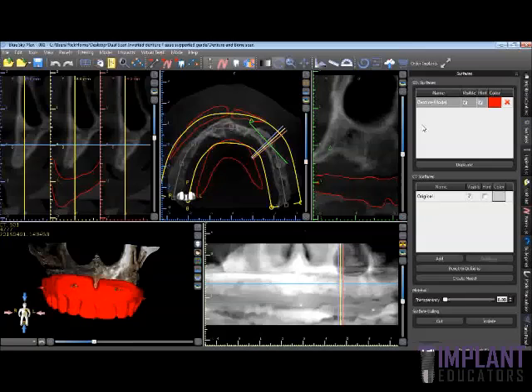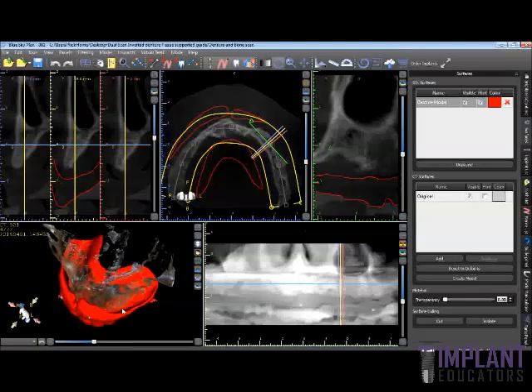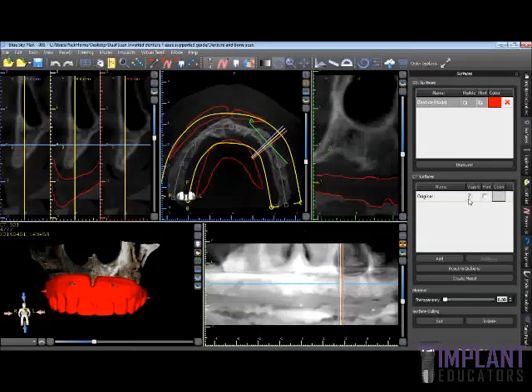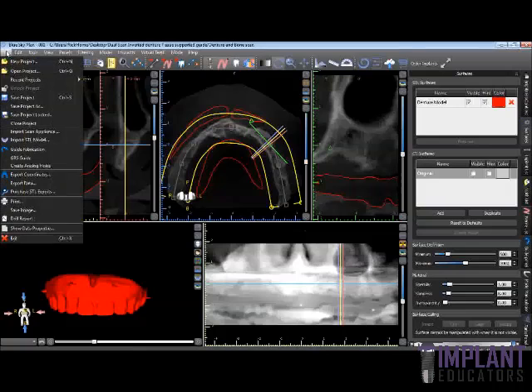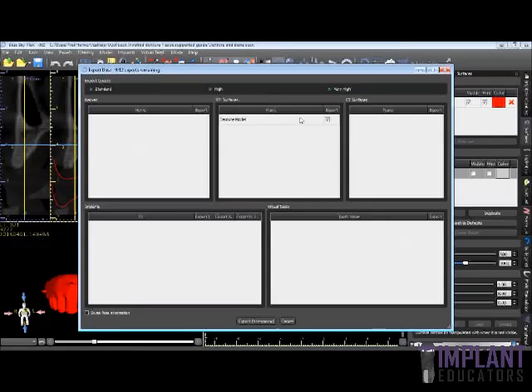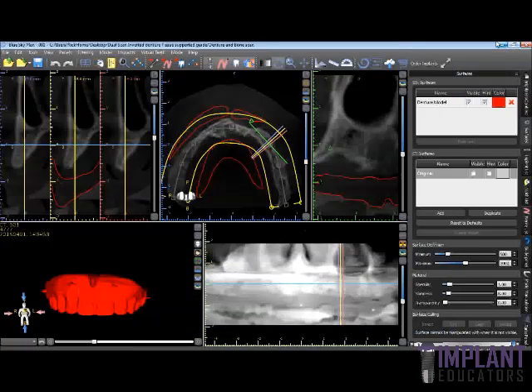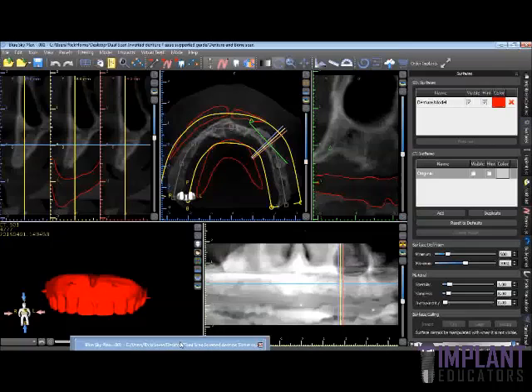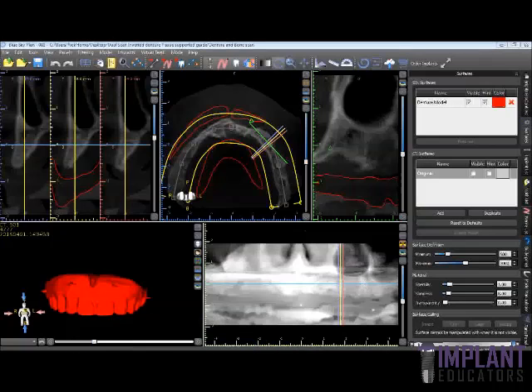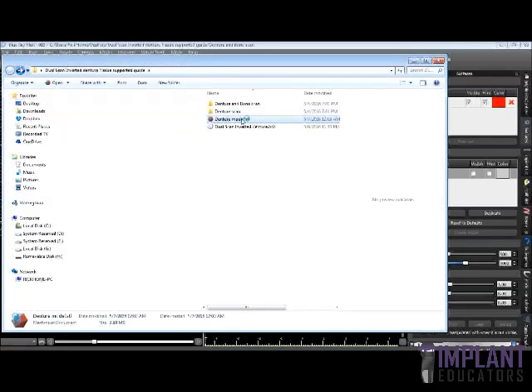In order to get a soft tissue model, we're going to export this denture model out of the software. I'm going to uncheck the original model, which is a CBCT of the bone scan, then go ahead and do Export Data — it's only going to have the denture model there. We're going to export this and call it 'denture model' and hit save. We're then going to open that denture model in another software called MeshMixer, which is free software available from meshmixer.com. So we're going to open this file that we just exported — in order to invert it, we're going to open it in MeshMixer.